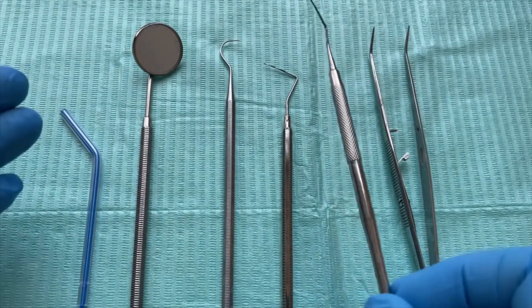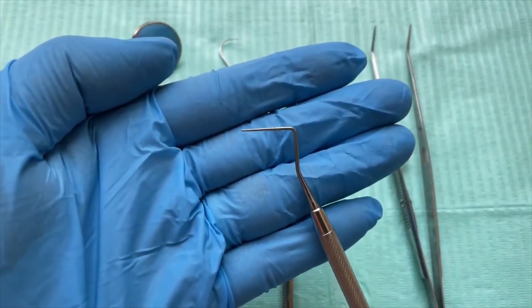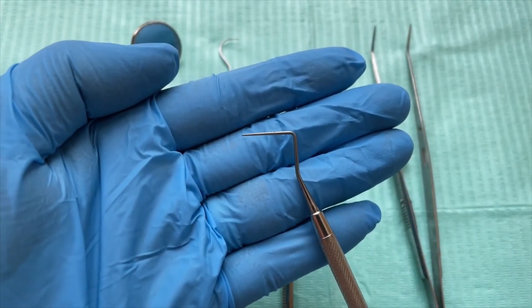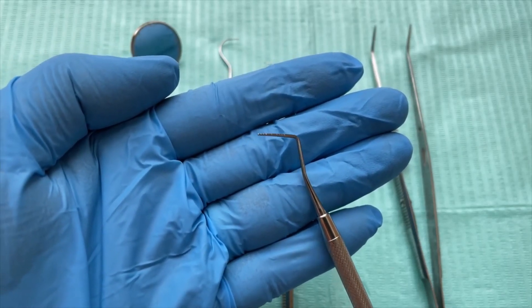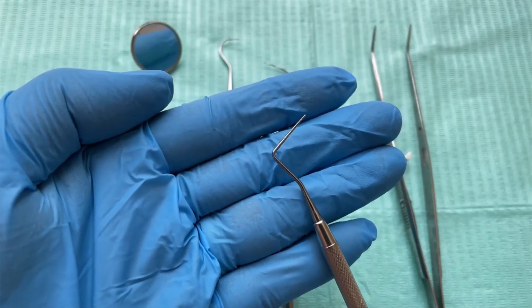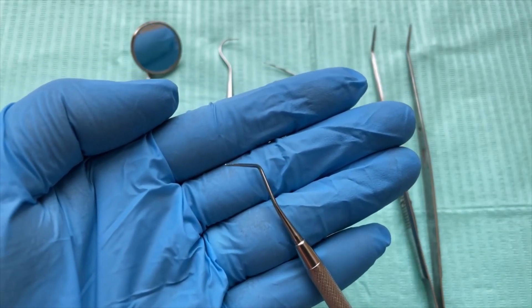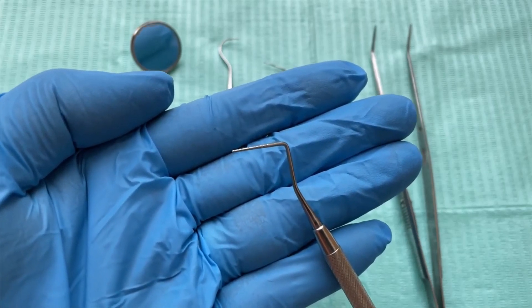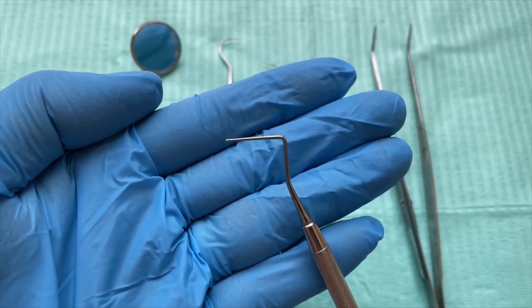And this is William's probe. If your clinician will do further checks on the patient's gums, they will use this William's probe. If you can see the calibrations there, this is used to do a six-point pocket chart.